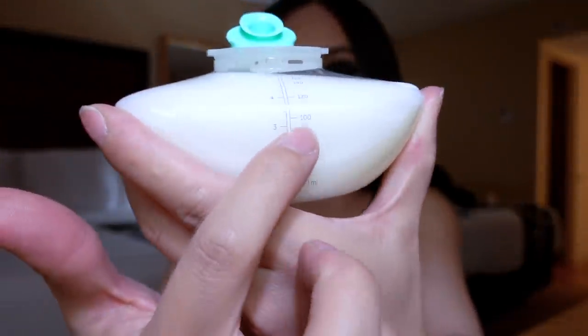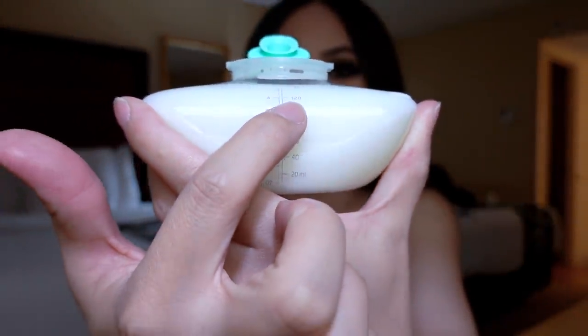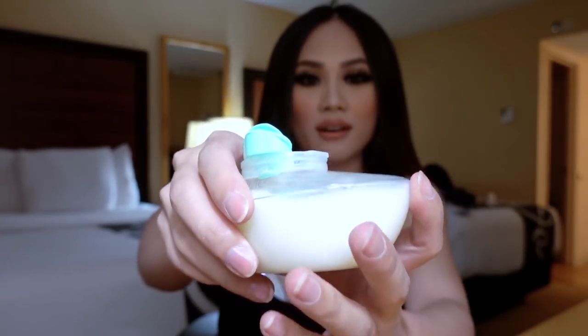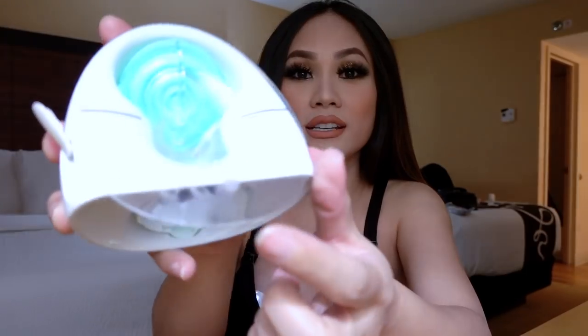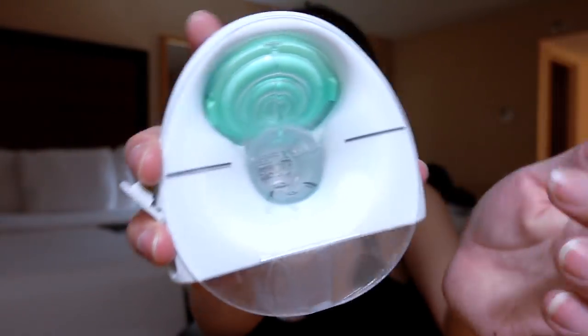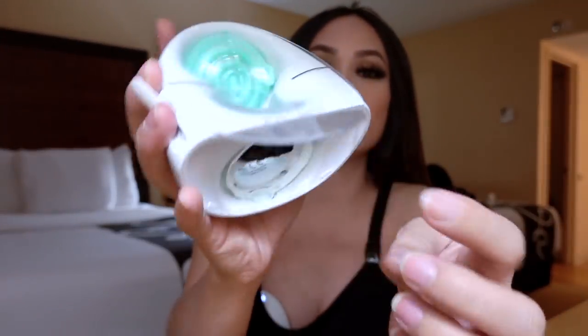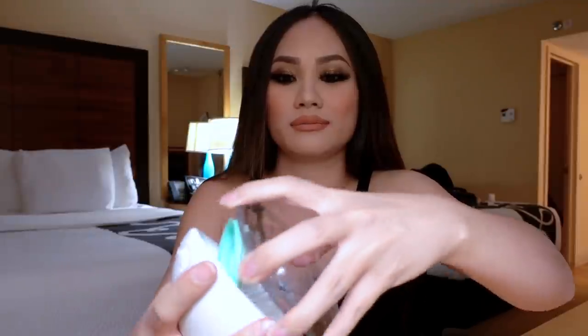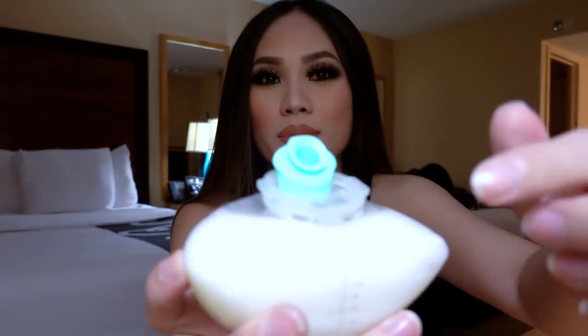As you can see, I'm going to take this off by pressing this button right here, and you get about five ounces. So there's that number that I was talking about. You can push it more because it still has some room, but if you push more it might leak, which is a con that I would like to mention. You can see that it leaks here — sometimes if it doesn't go in through here and out through this hole, then it'll leak down this way, and then you'll be wet around your bra area. So it doesn't really keep all the milk.